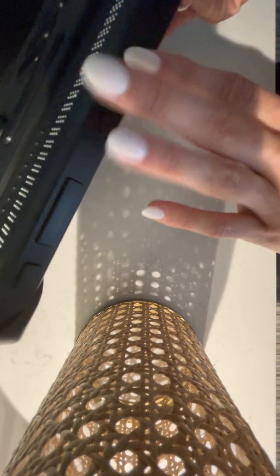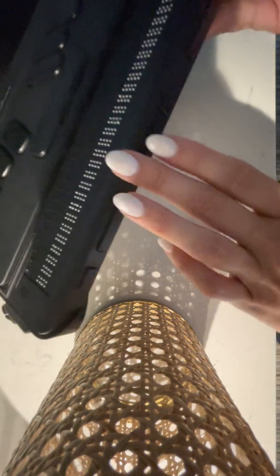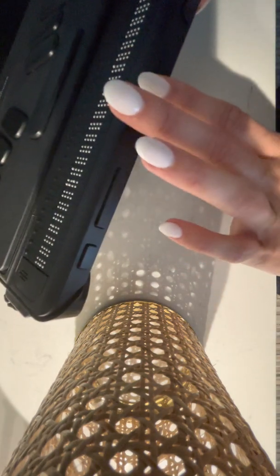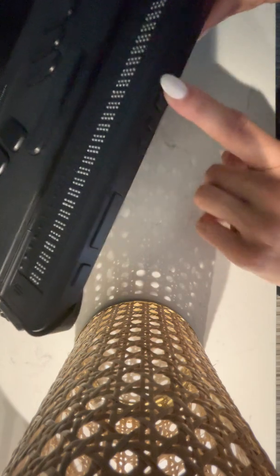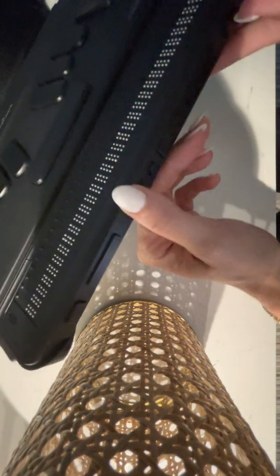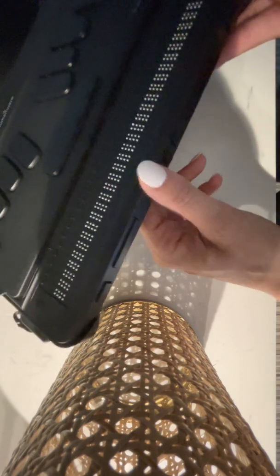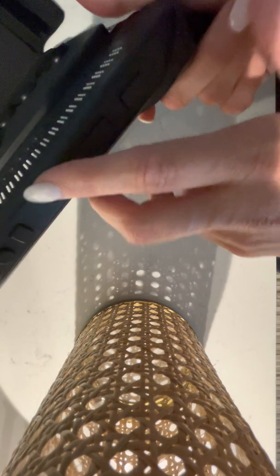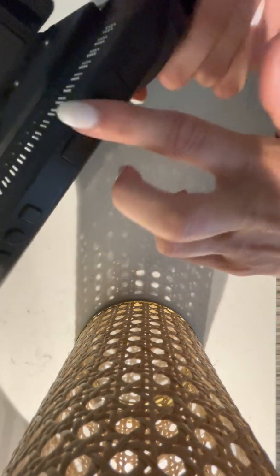If I move towards the center, I've got a backwards play button, which is my back button, a circular button, which is my home button, and then I've got a small square button, which is my context menu. Those three small buttons are located in the center of the device, closest to me if I had it flat. Moving on to the right, I've got a right thumb key as well as a next thumb key.